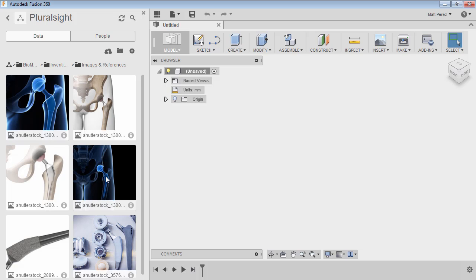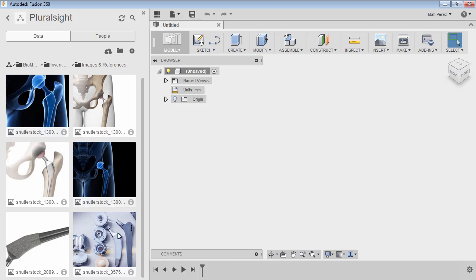Of course, we're dealing with organic shapes in nature, so we need to make sure that they fit the specific person—in this case, the specific bone structure. But the idea that we have is this bottom right image here. This is the type of implant that we're going to be working on.